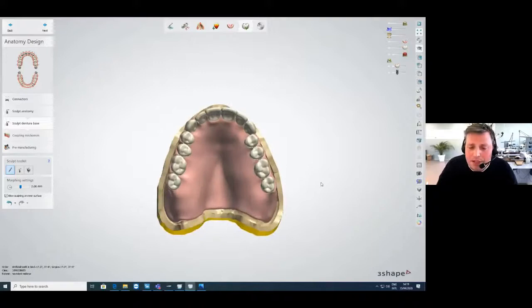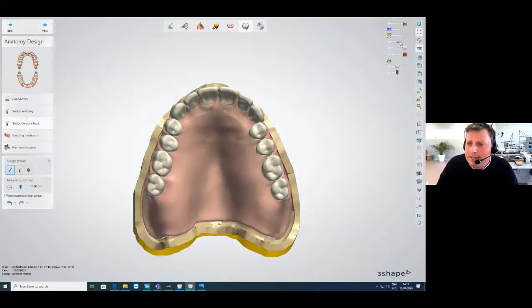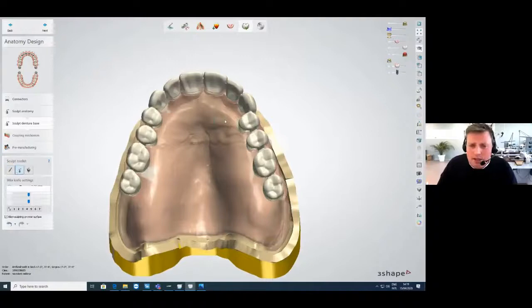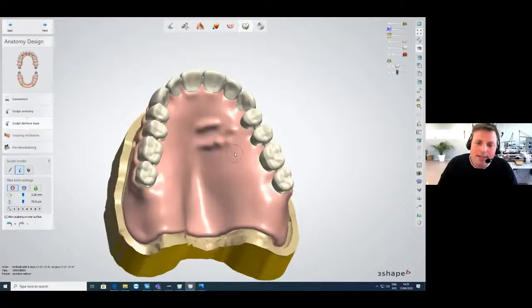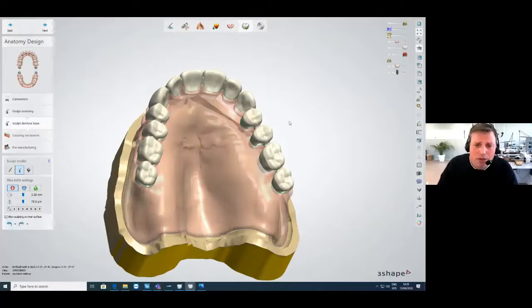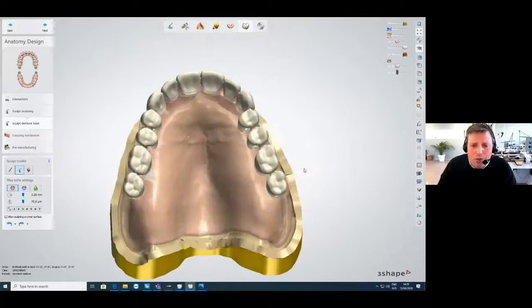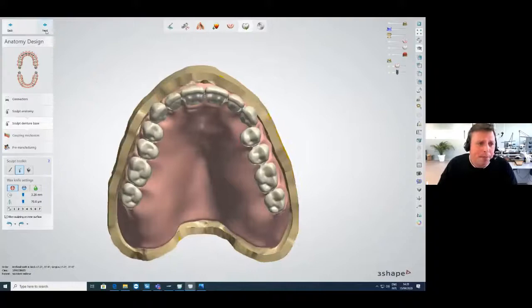Make the view a little smaller and go on top of the rugae to copy it. It makes an almost perfect copy of the natural rugae from the patient's palate. This is a perfect solution if you want to incorporate rugae into your denture — you can do it this way and it will closely match the natural rugae.